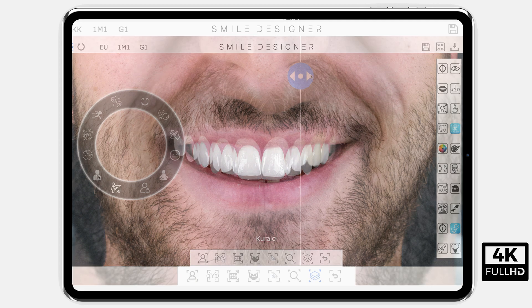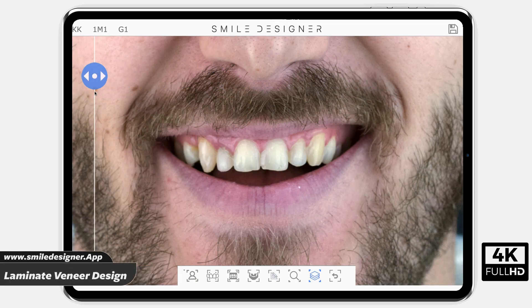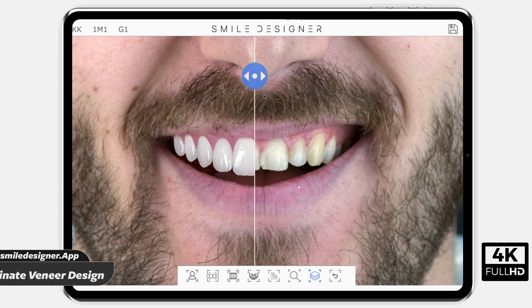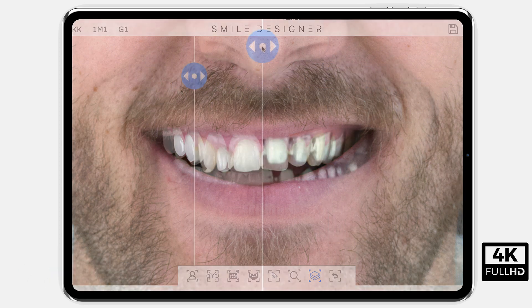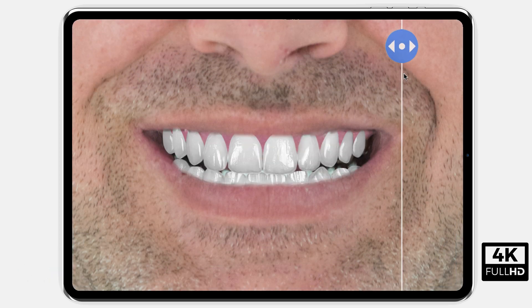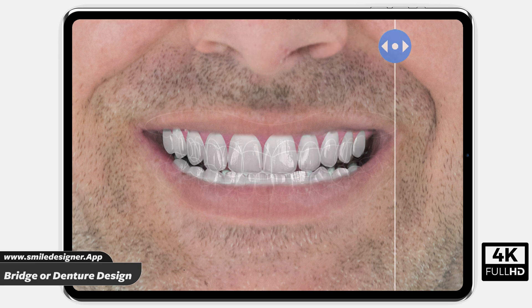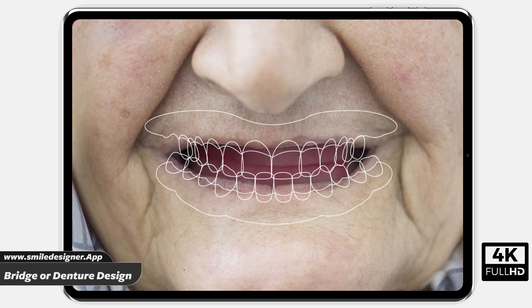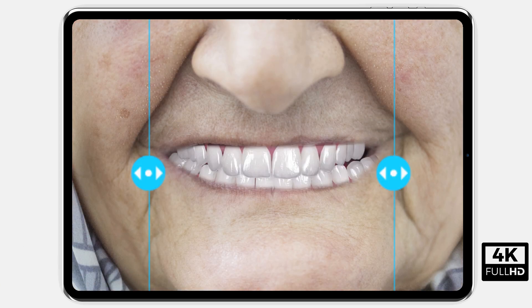Laminate veneer design can be performed. Emax and zirconia design can be performed. Ceramic bridge design with metal backing can be performed. Complete denture design can be performed.